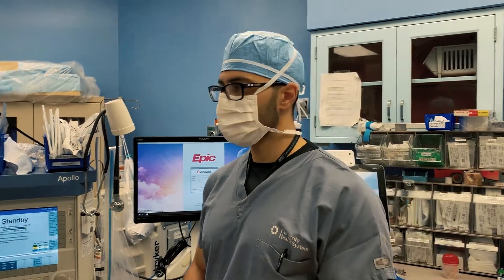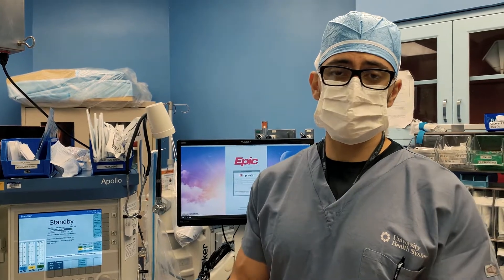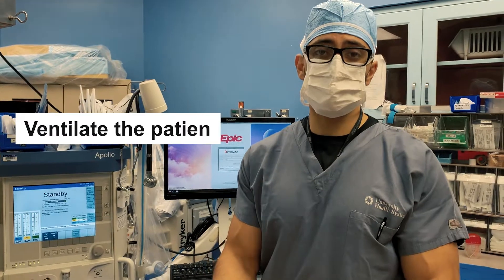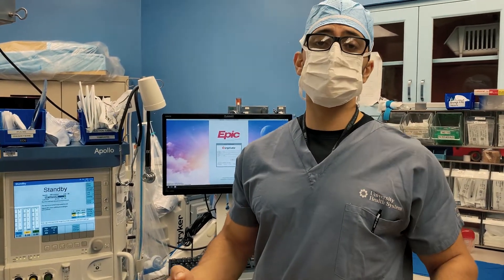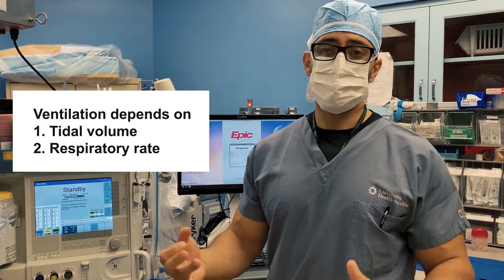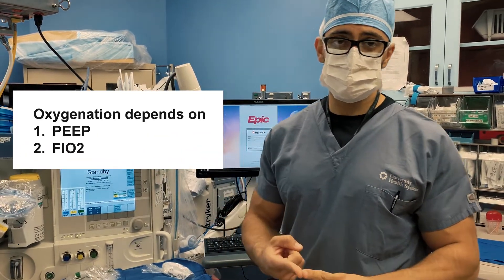With all these different mechanical ventilation modes, you're going to be able to deliver both tidal volume and respiratory rate — in other words, you're going to be able to ventilate the patient — and you're also going to be able to oxygenate the patient. Ventilation depends on your tidal volume and your respiratory rate, and oxygenation depends on your PEEP and your FiO2.